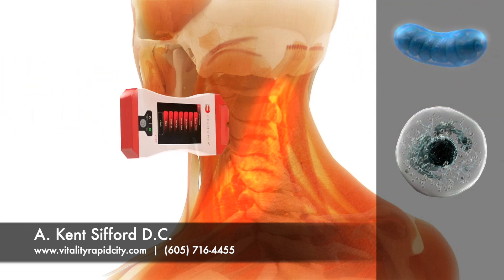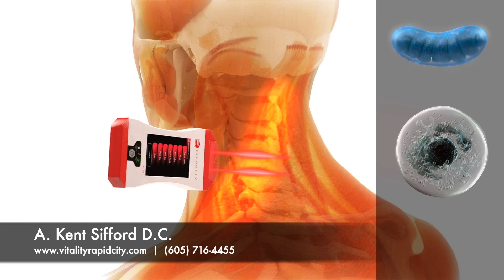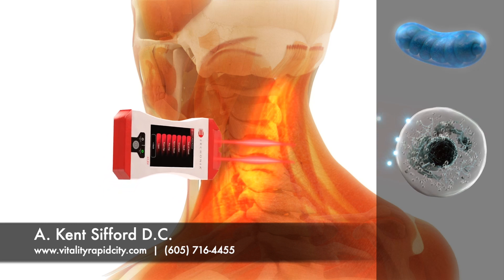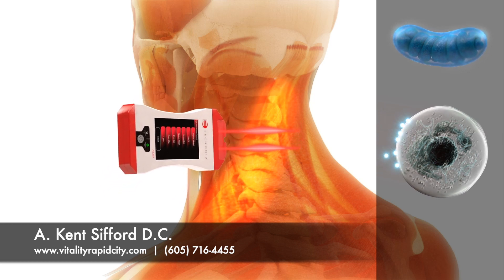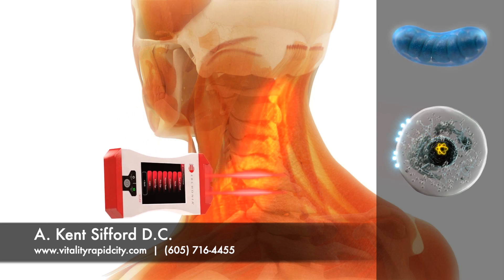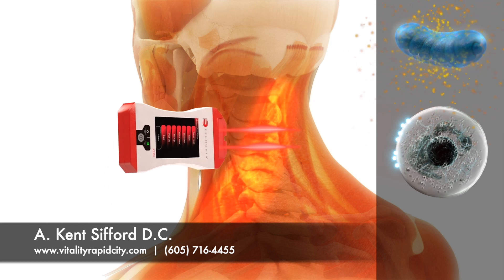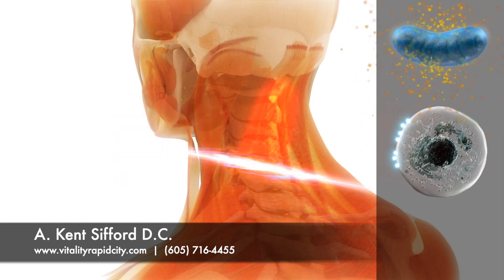The laser beam produces billions of photons that are delivered into living tissue and absorbed by a receptor on the cell membrane. The photon then dispenses an electron into the cell, which travels to the mitochondria and is ultimately converted into the ATP energy necessary for a cell to heal and regenerate.